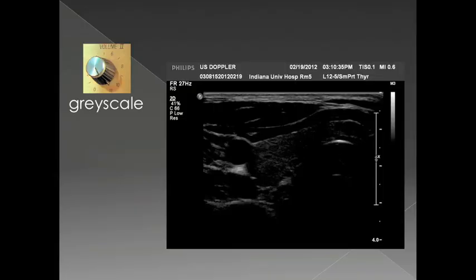The first thing I want to talk about is gain. Gain is basically the same thing as turning up the volume on your iPhone or iPod. When you turn up the volume too loud, the sound starts to break apart and distort. The same thing can happen with ultrasound — when you turn the gain up too high, you can start to have artifacts in your images and make things look like they're there when they're not.